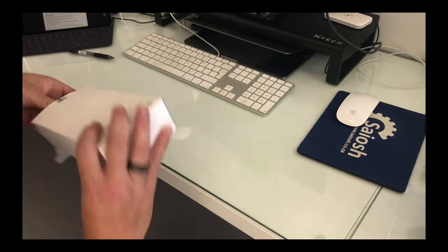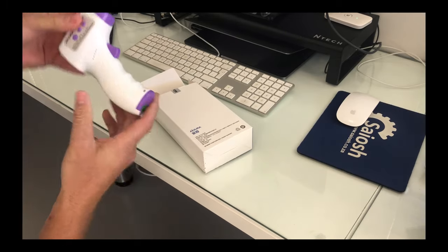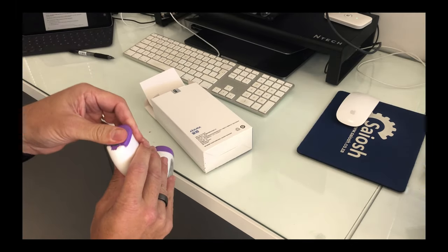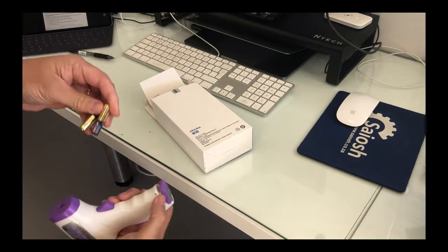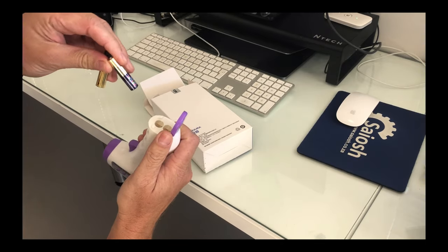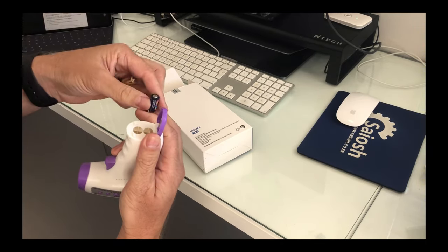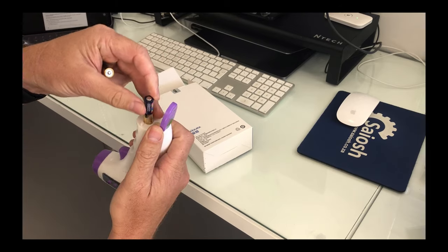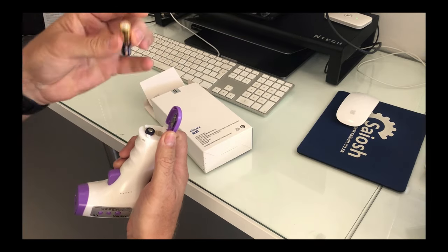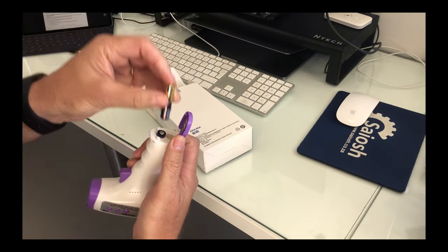Remove the thermometer from the box and you'll find it in some packaging. To confirm the way the batteries should go in when you load it into the thermometer, the first battery should go with the pin down. The second battery should go with the top pin up.